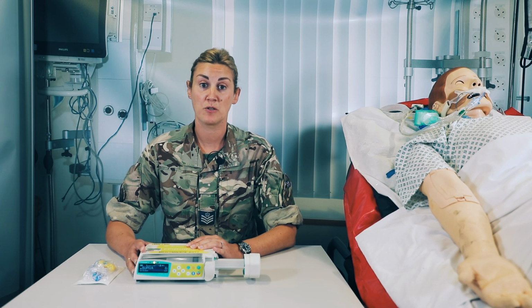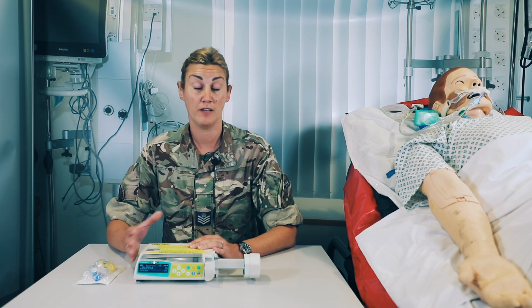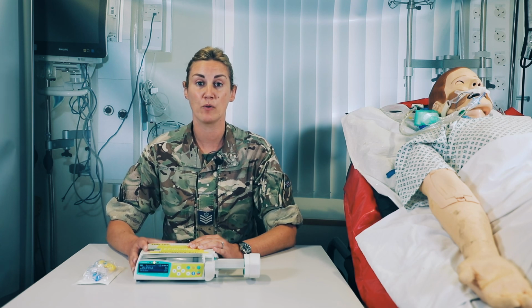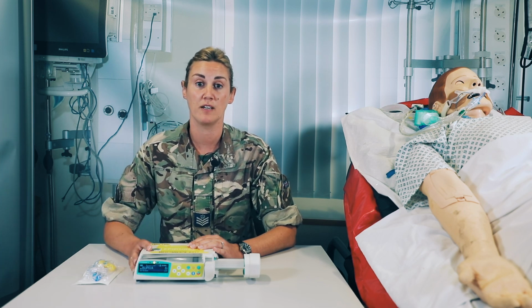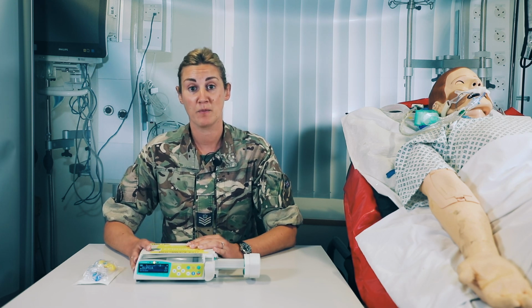The alarms on the epidural are exactly the same as the perfuser, so I'd recommend that you, if you need revision, to re-watch that video, but there will also be a picture on the screen of the alarms just to remind yourself. That's the end of the epidural lesson.